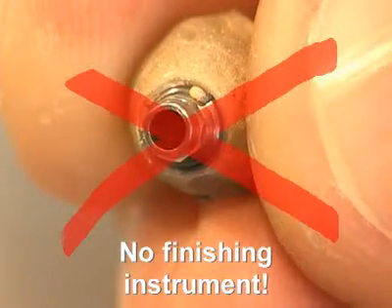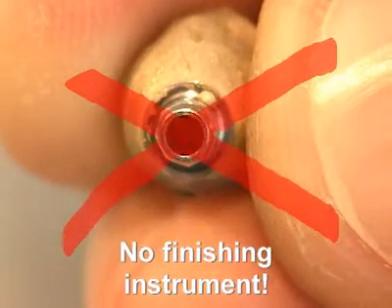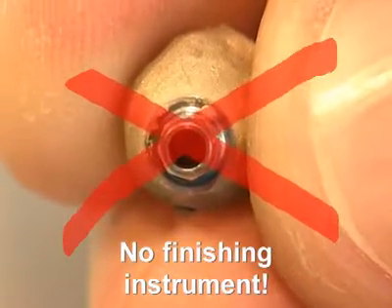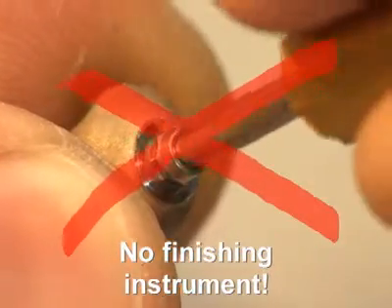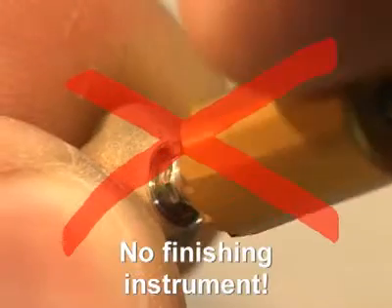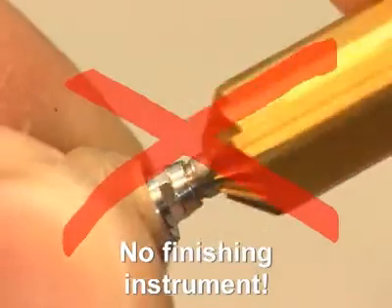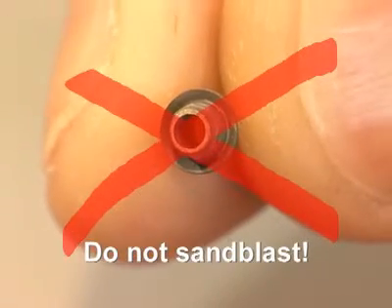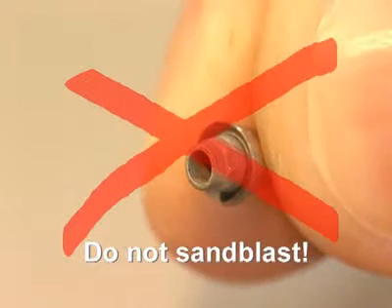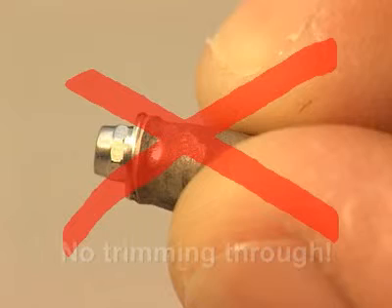Intruded casting metals and casting pearls cannot be removed from the shoulder part of the gold abutment with a finishing instrument for the 45-degree shoulder due to design reasons. If casting errors occur, such as insufficient mold fill, casting beads, or casting defects in the interior, the procedure must be repeated, as the long-term success of the prosthetic work depends on the accurate fit of the restoration.